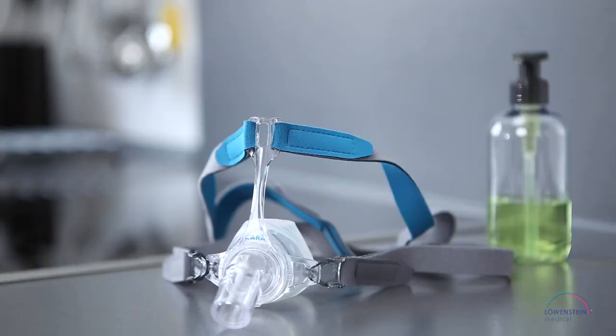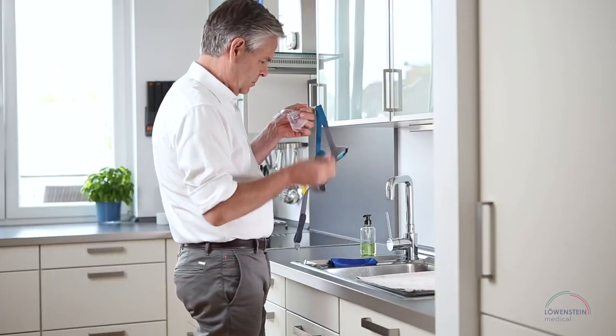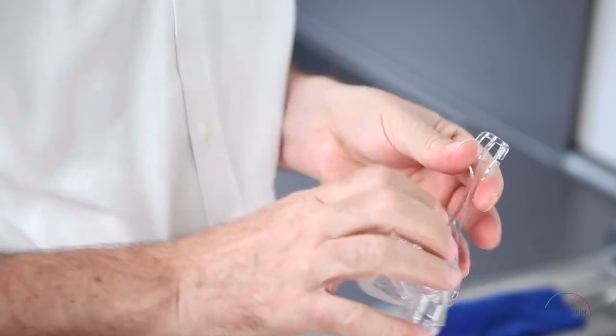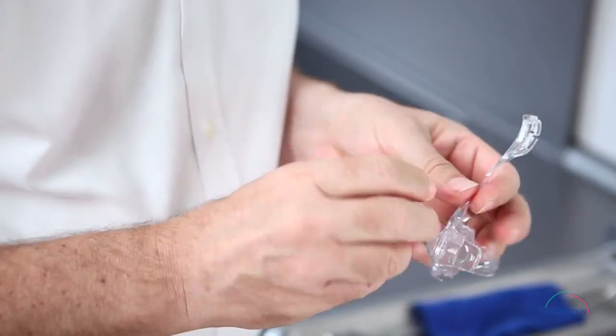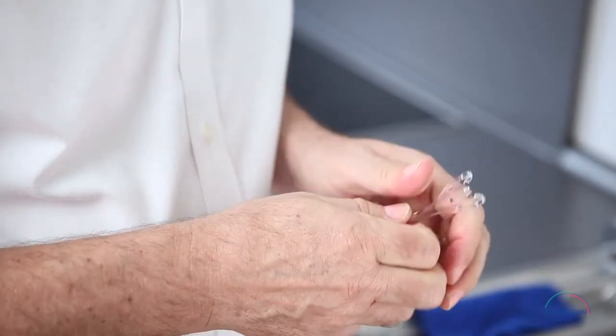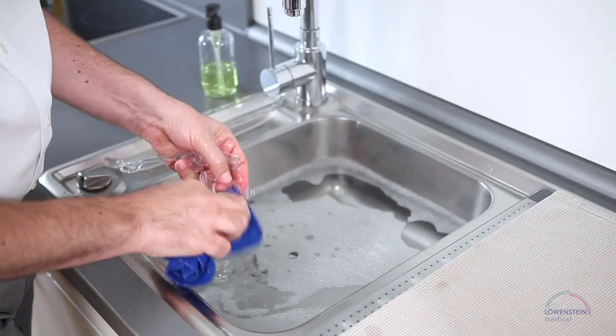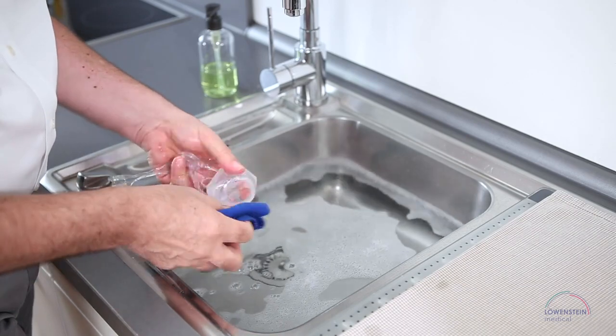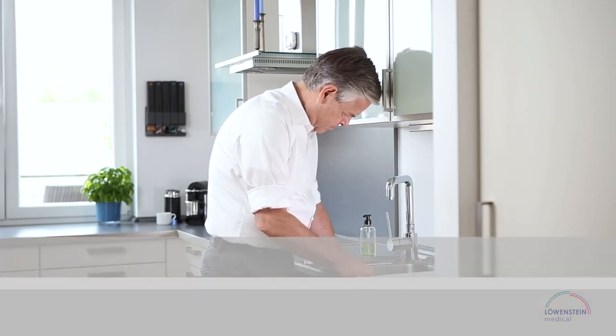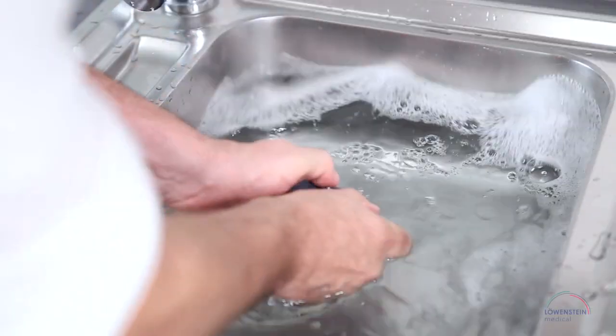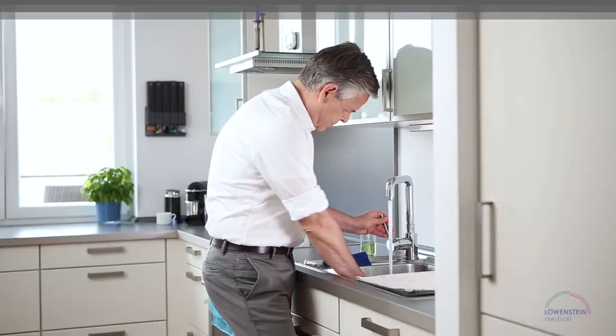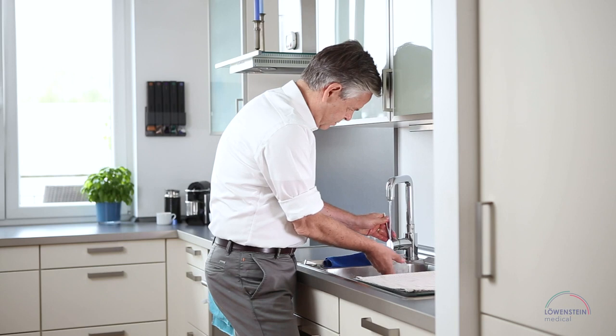We recommend that you clean all masks from Löwenstein Medical every day. Take apart the headgear, mask, cushion and all plastic parts as shown here with the example of Cara Full Face. Wash all the parts in warm water with a mild detergent. Cleaning the headgear just once a week is sufficient. Rinse all parts thoroughly with clear running water.